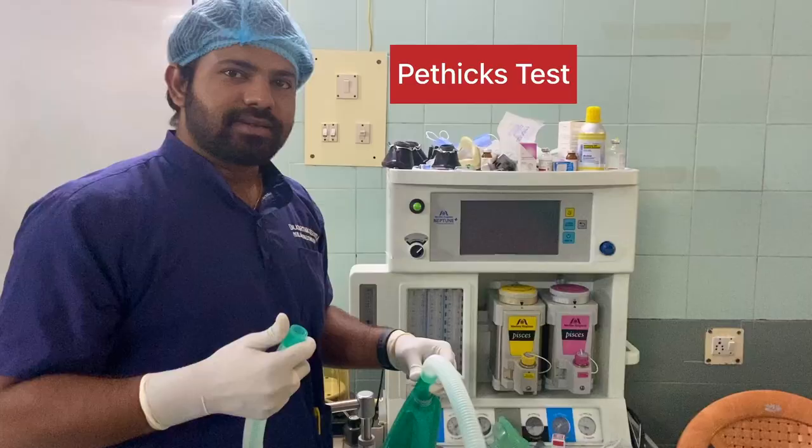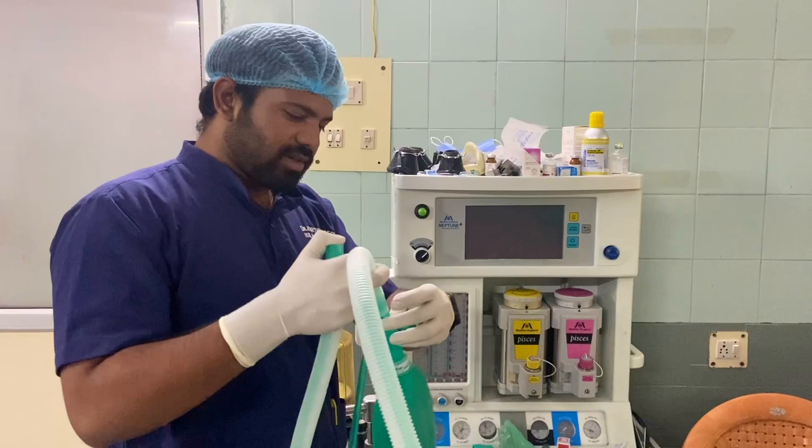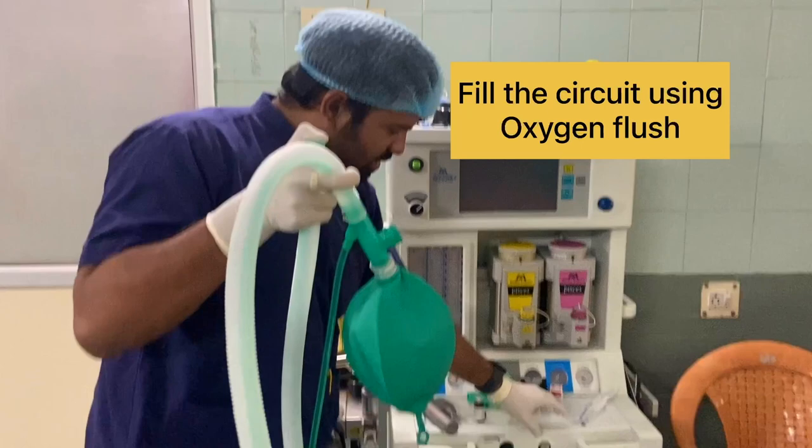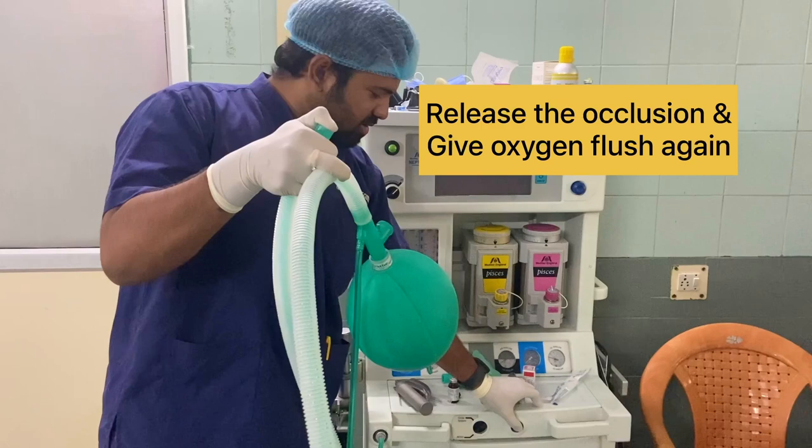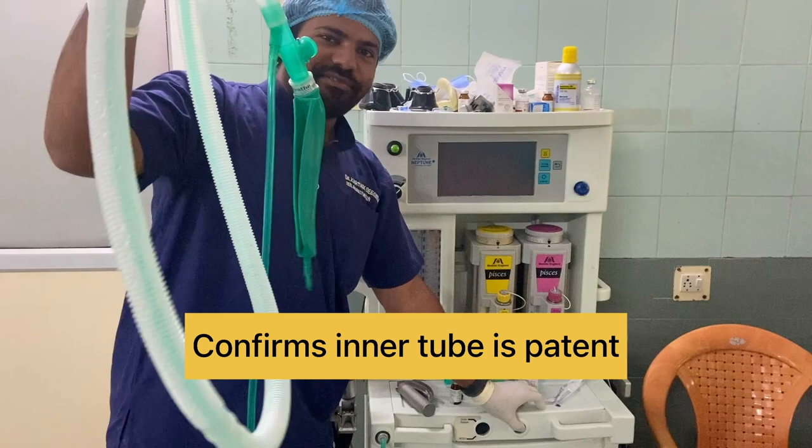For the Pethick test, occlude the patient's end and close the APL valve. Fill the circuit using the oxygen flush to inflate the reservoir. Close the outer tube with your thumb, then release the occlusion and press the oxygen flush. Due to the Venturi effect, the bag deflates, confirming correct inner tube configuration.